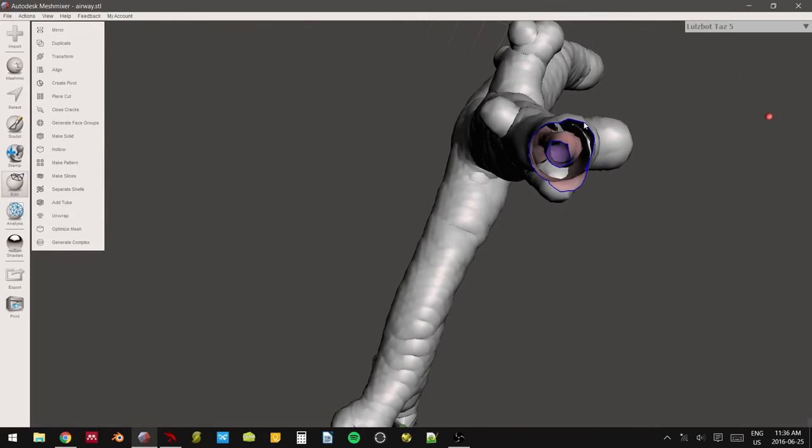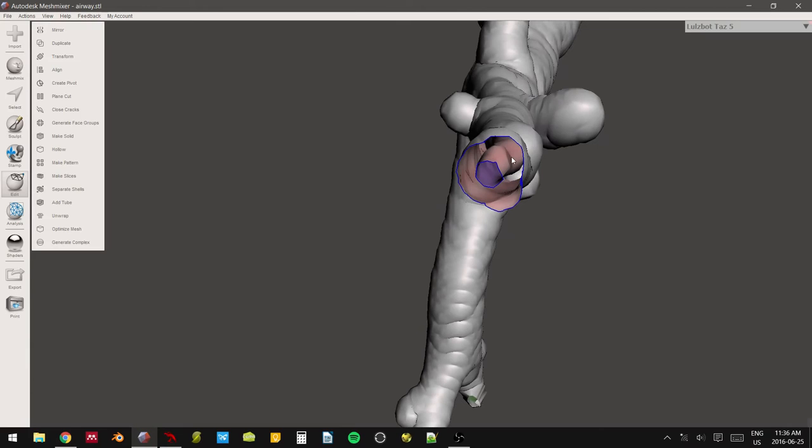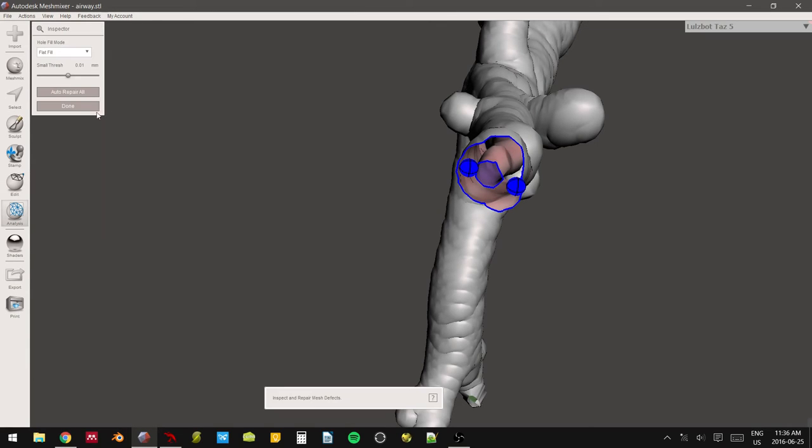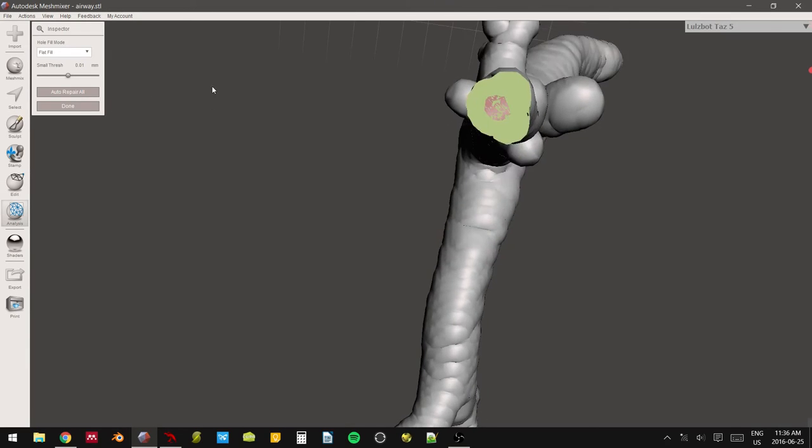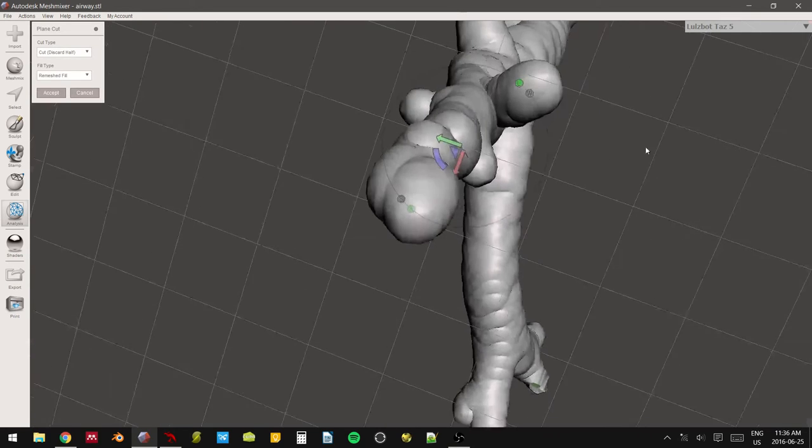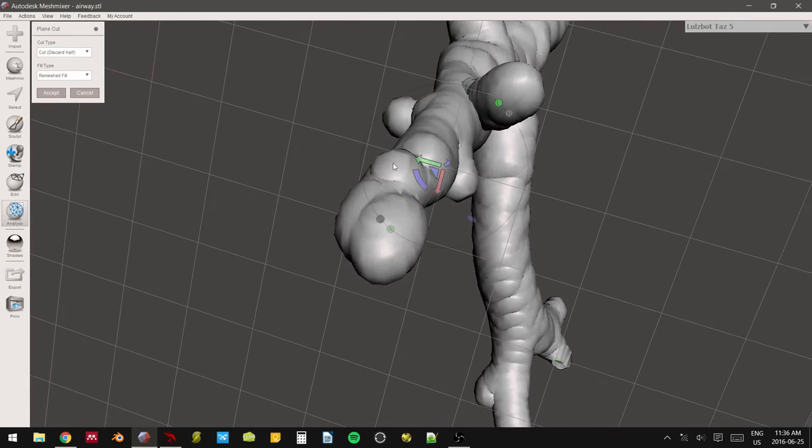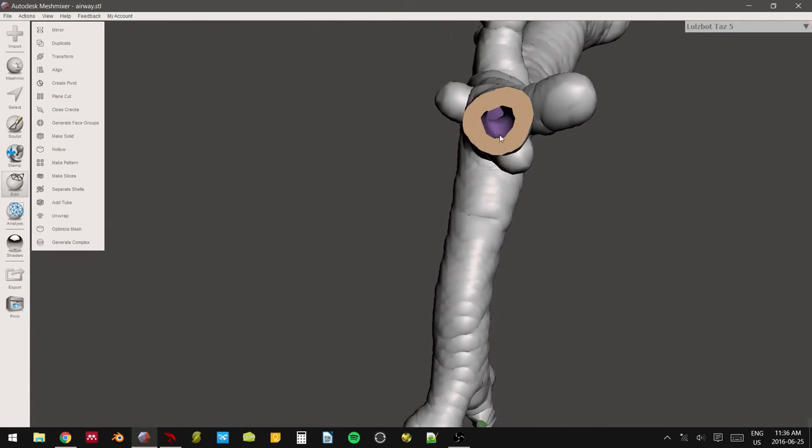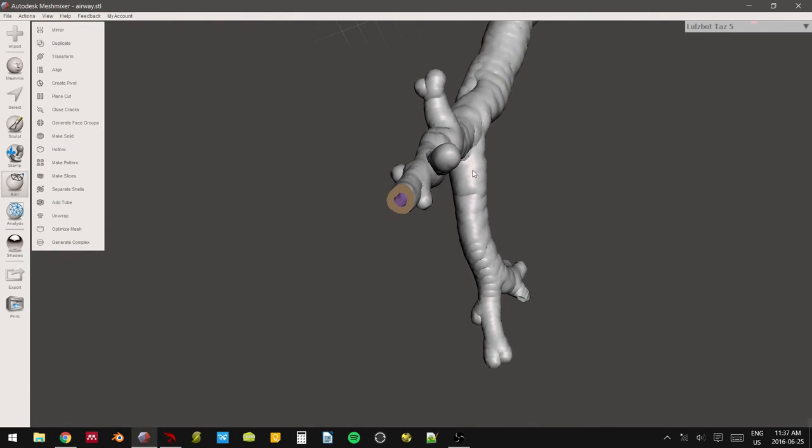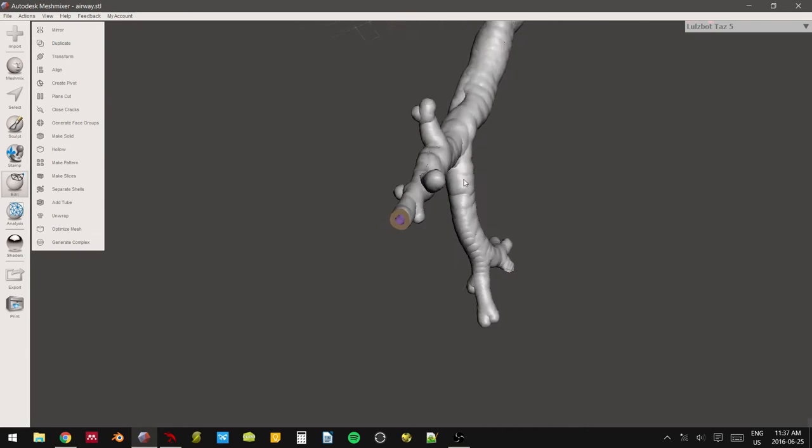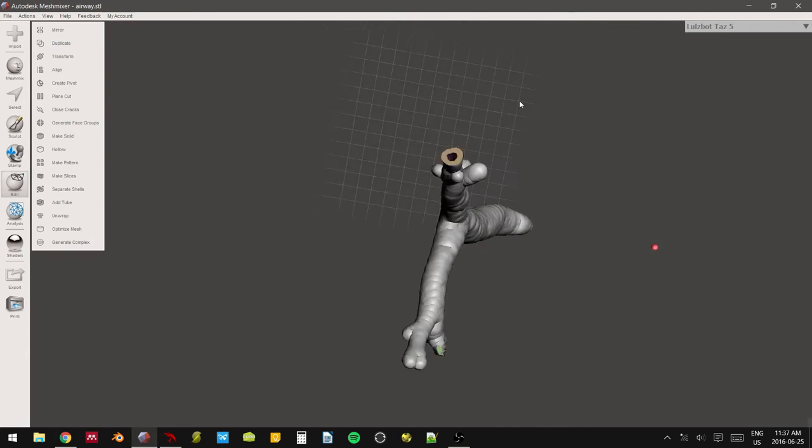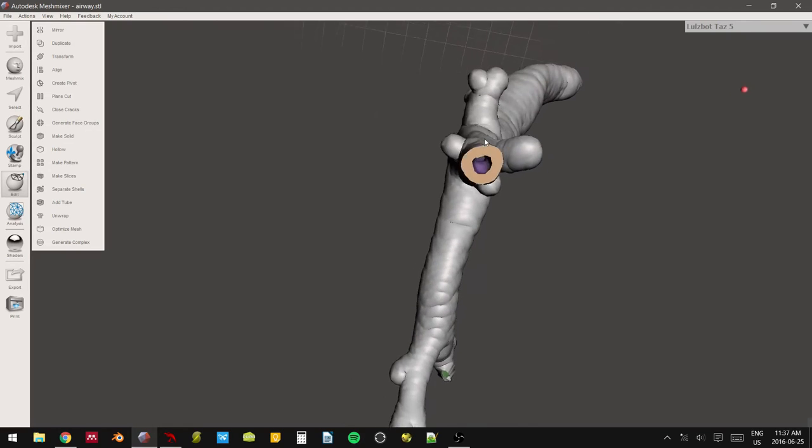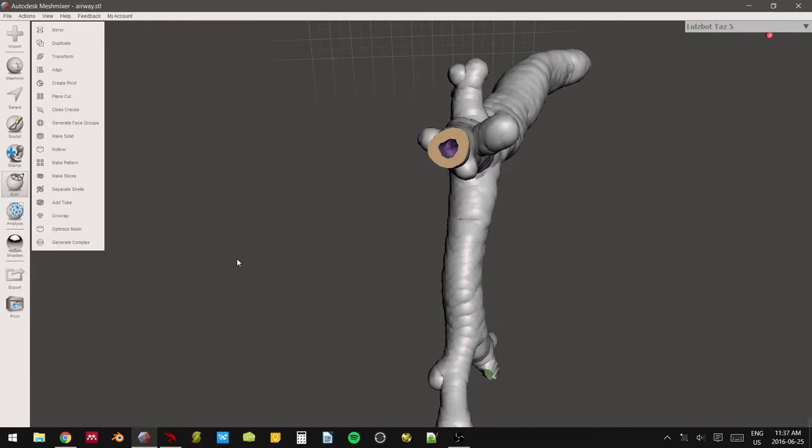If you have it looking like this though, it's no good. This is non-manifold. So you can hit inspector, repair, and it should be fine. But it's just easier if we don't do that. And we find one that's actually manifold. So like this. If I had the preview available to me in MeshMixer, it would be far easier to actually gauge where we are.